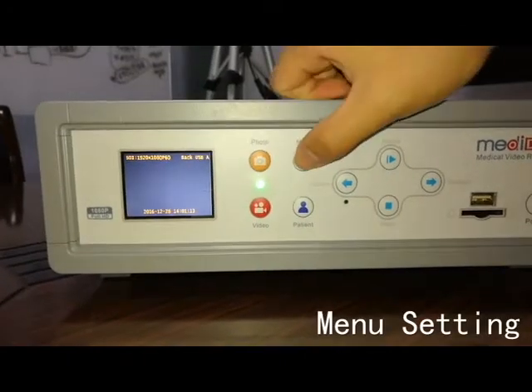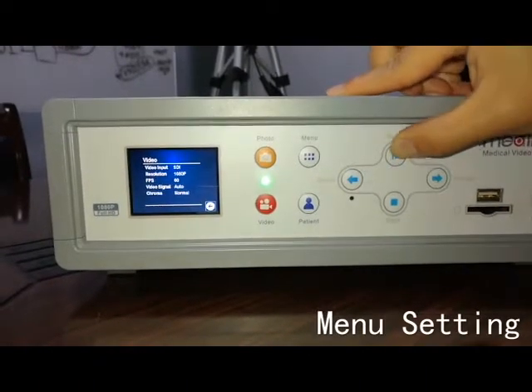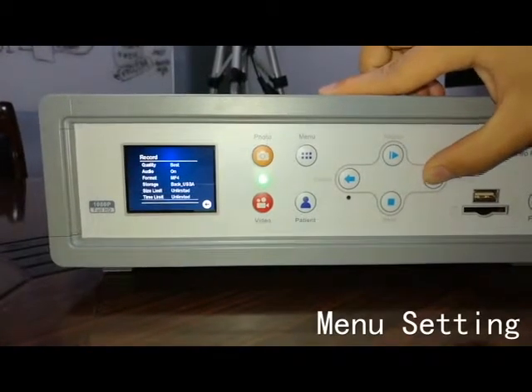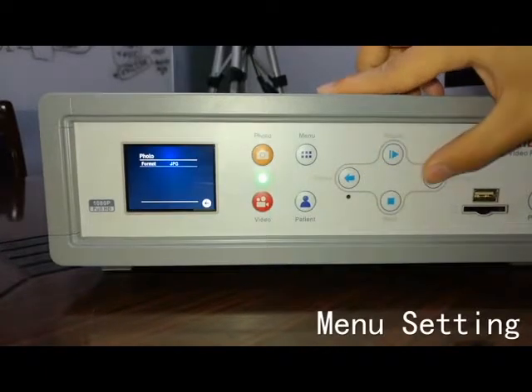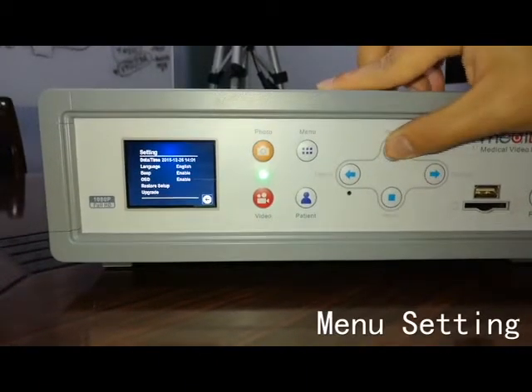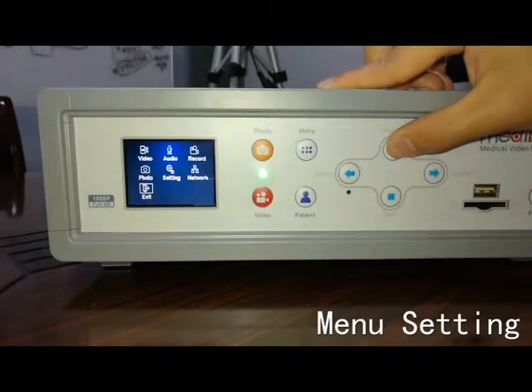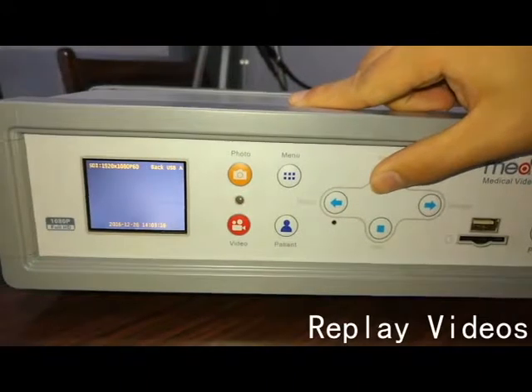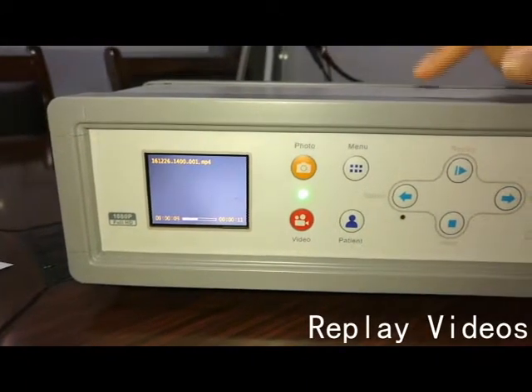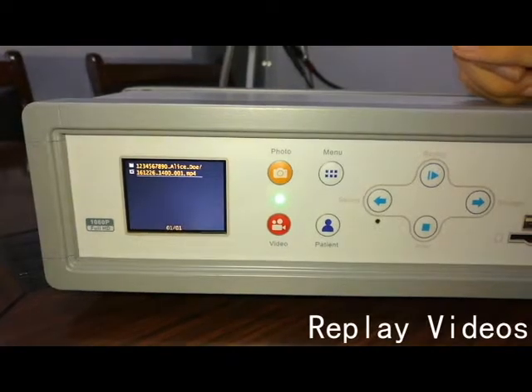Press the menu button to switch specific parameters. Press Replay to replay the videos. Use the four selection buttons to choose and play the exact video. Press the Input button to return.